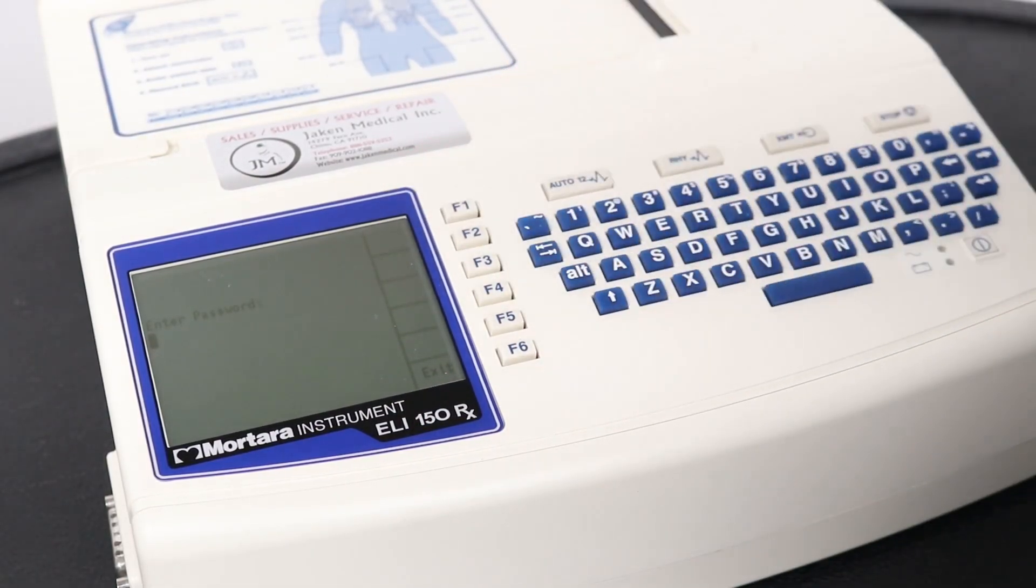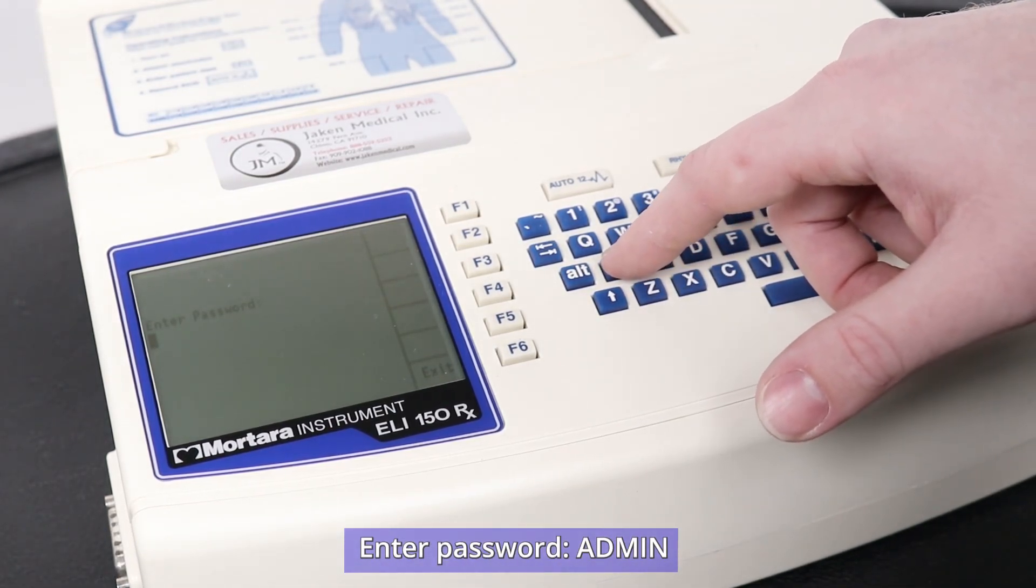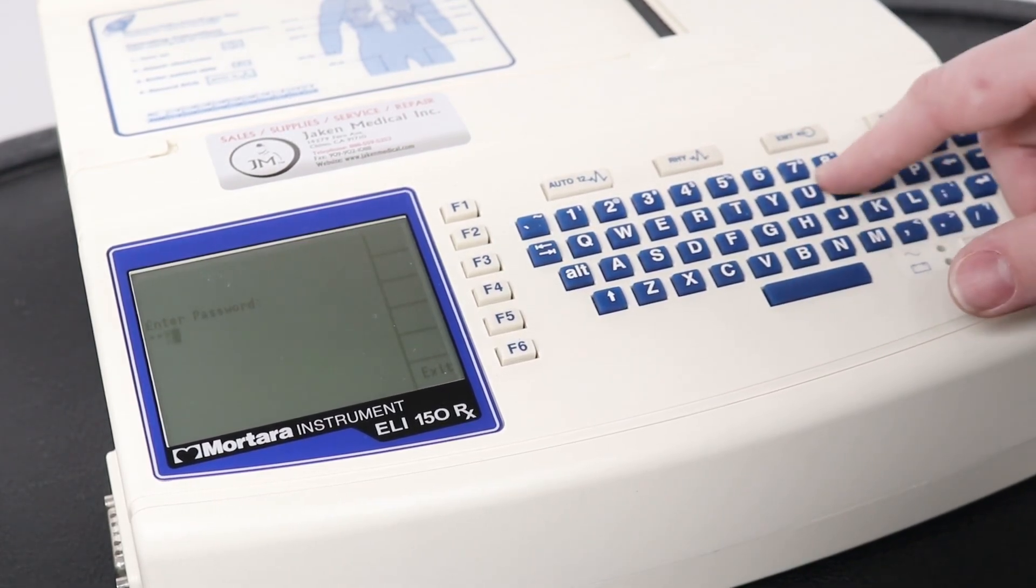Once you press that, you'll be prompted to enter password. The password for the system is admin, A-D-M-I-N.